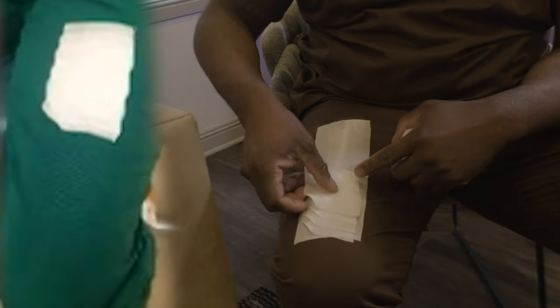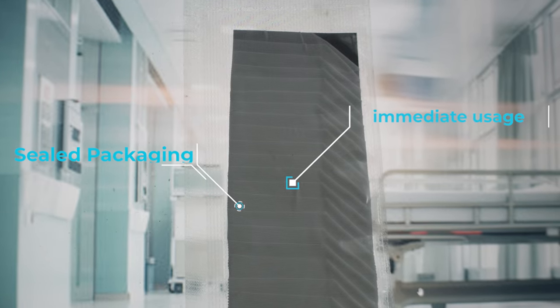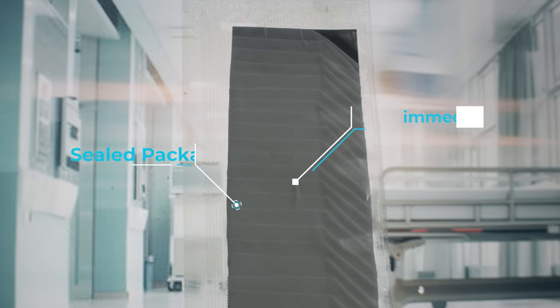In addition, applying tape directly to a patient helps create a longer-lasting adhesion with less chance of peeling up on the corners. This is crucial when patients need to have catheters in place for longer periods of time, such as dialysis ports and even chemotherapy infusions. When it comes to emergencies, every second counts. Determining life or death is an obstacle that this tape can truly help with. This isn't just another tape, but an investment in saving lives.